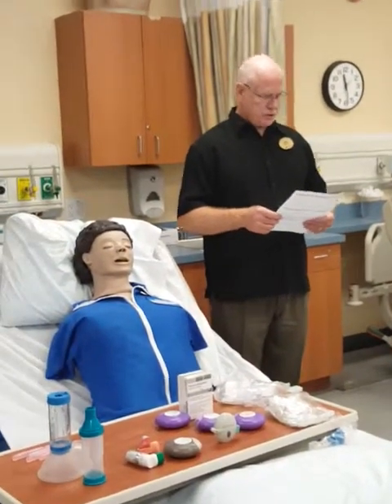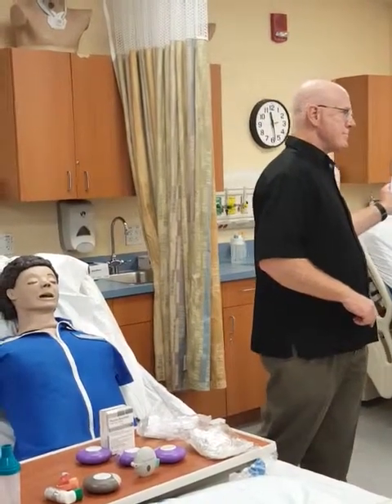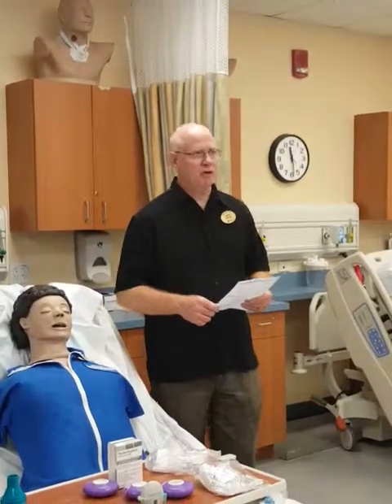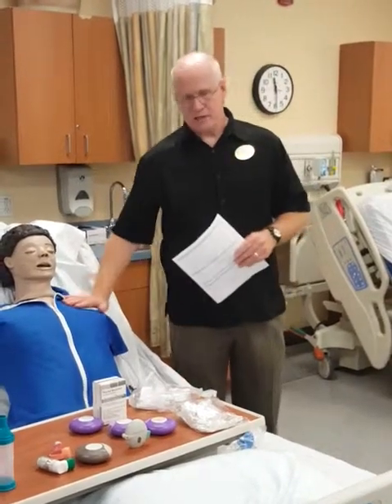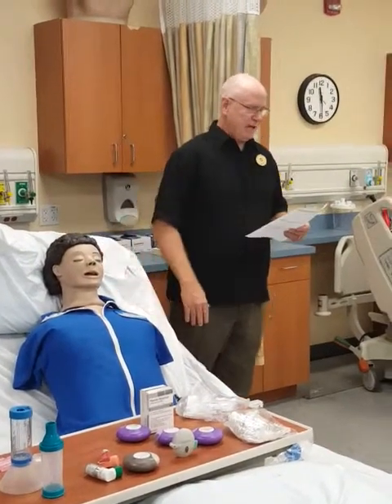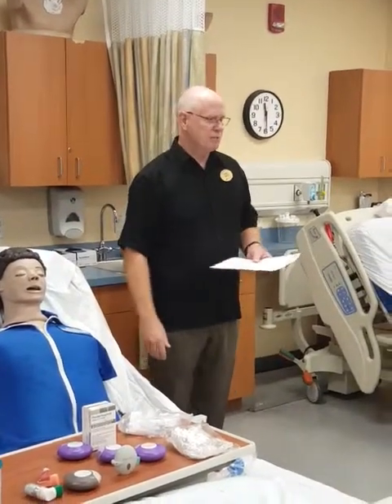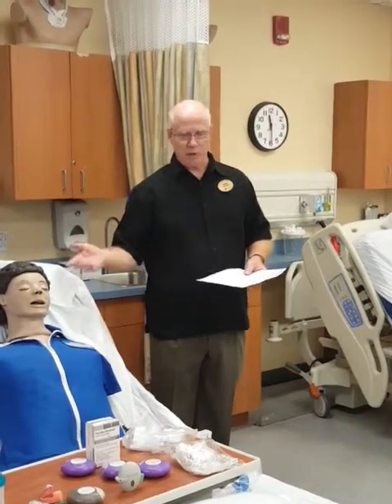Let's go first on the side that says small volume nebulizer at the top. When we're giving aerosolized medicines, there's a sheet up front. Delivering aerosolized medications — they're medications, they require a physician's order. You're going to be in your respiratory department, you're going to get an order. It's going to come through some media, come down to your department, and they're going to call you and say that this patient has just been ordered this therapy.